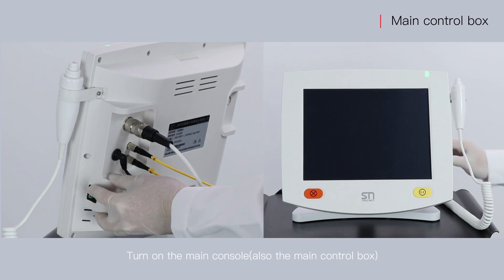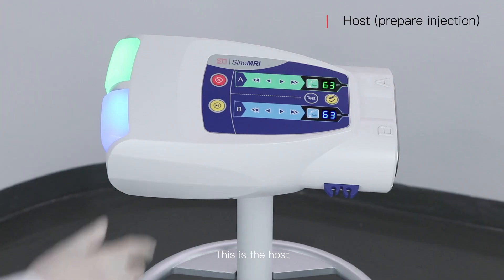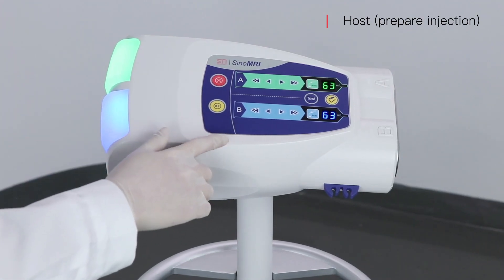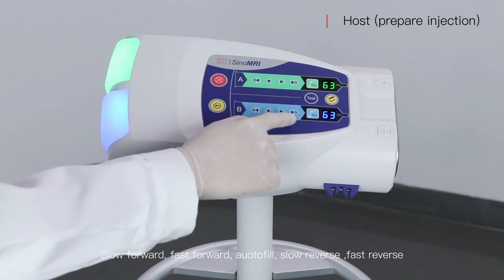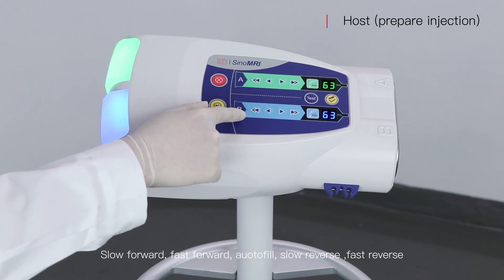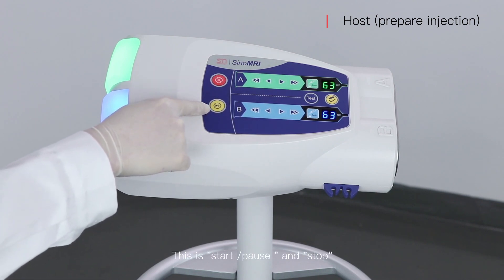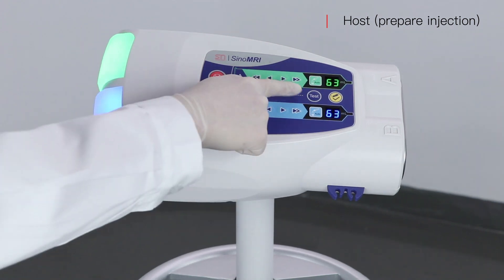Turn on the main console. This is the host. The controls are: slow forward, fast forward, auto fill, slow reverse, fast reverse, start, pause, and stop. This is a test.